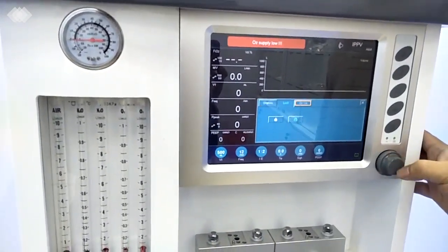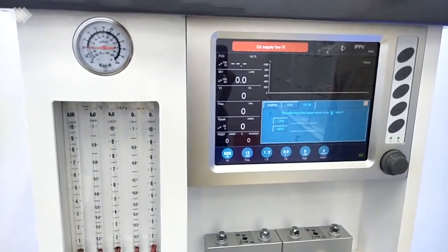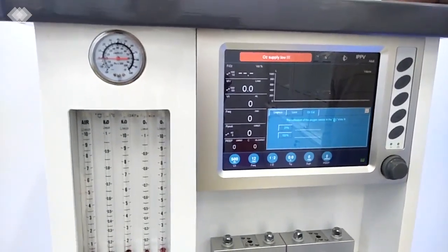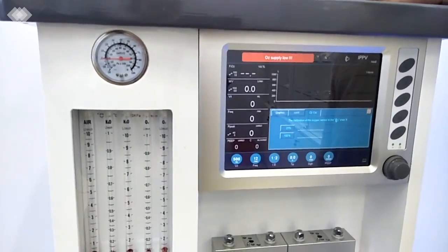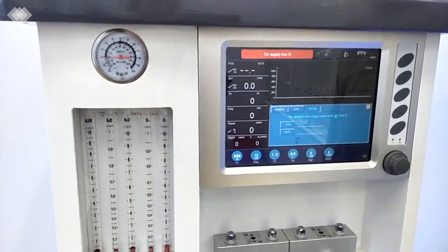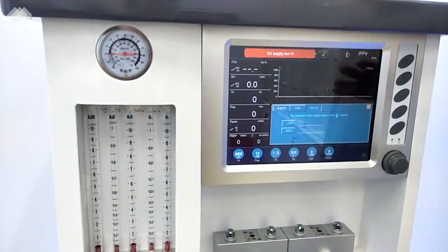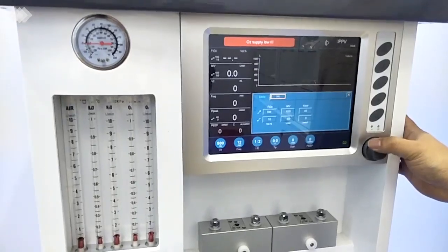And the third one here is for the oxygen calibration. For all our machine, we have the oxygen calibration. Before the machine to be shipped, we will do the calibration in China and in our factory. But we know in different countries, actually the oxygen concentration in the atmosphere is different. So that's why I mentioned first, before you get the machine, you only need to do it one time at the 21% and 100%. And also in the installation video, we have the steps to teach you how to do it. Very easy.